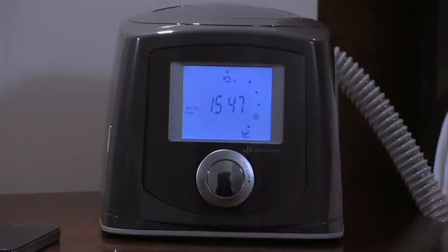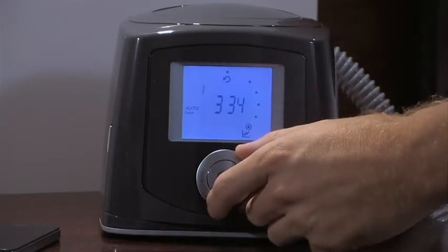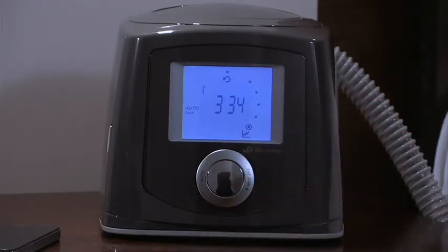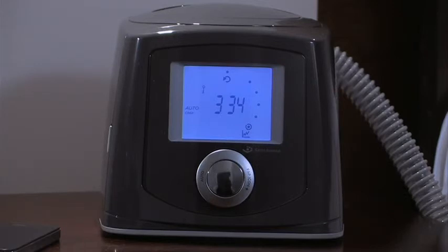The number of nights since first use. The checksum is a reference figure that your healthcare provider may request.